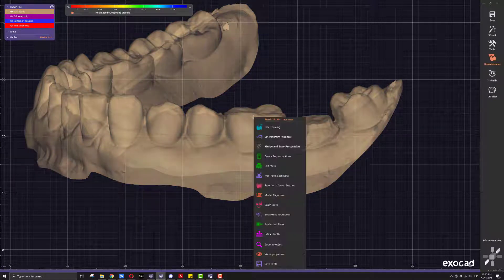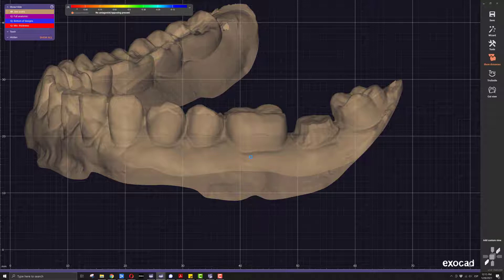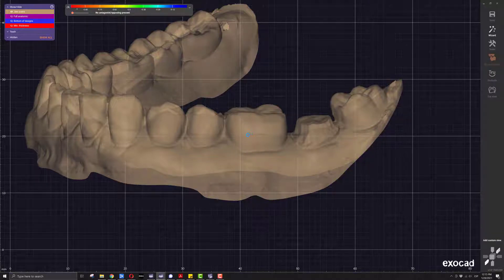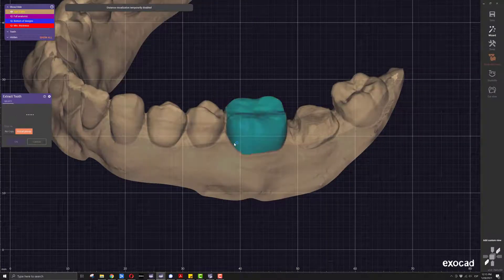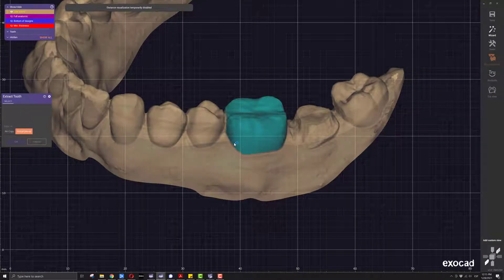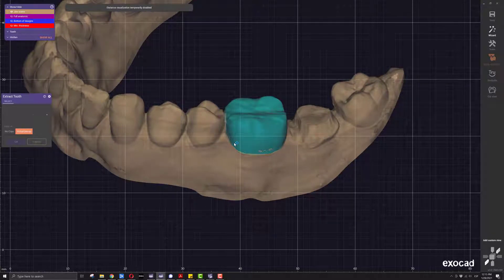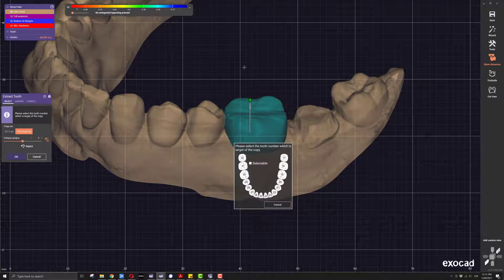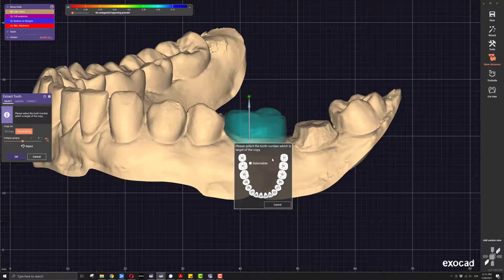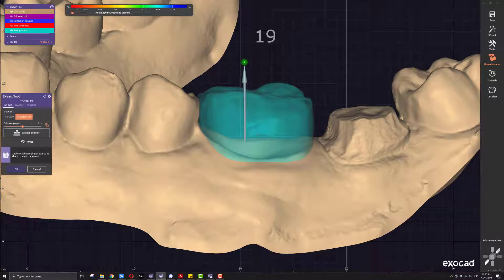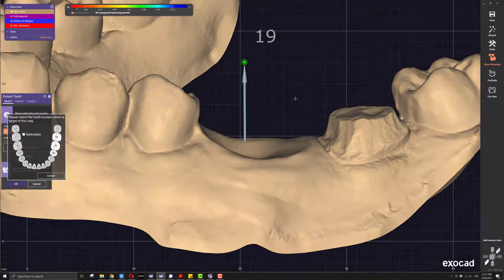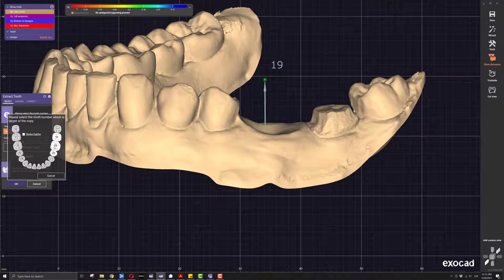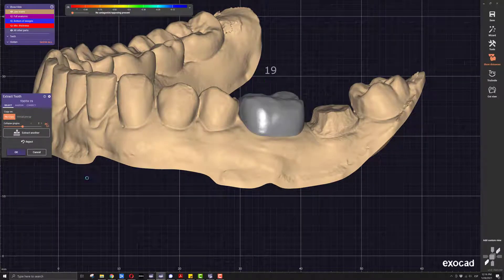What I'm going to do here is use the new tool — it is much easier. All you have to do is click on the tooth and it behaves like the provisional crown selection. It knows and selects the shape of the tooth, creating a pre-op mesh in case we want to keep it. Or we can tell the software we don't want to copy, depending on what you want. I'll just say no copy for the sake of the demo, and we click OK.